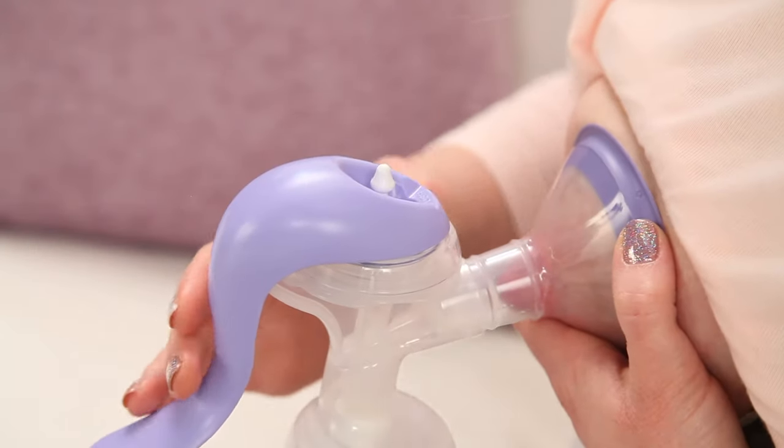For the expression phase, push the front of the handle so it rests on the second notch of the stem.